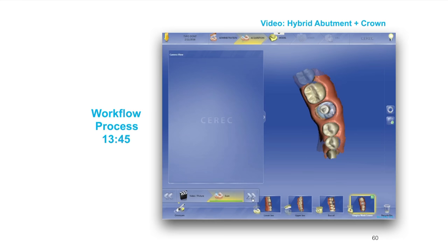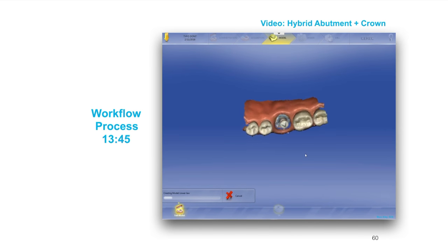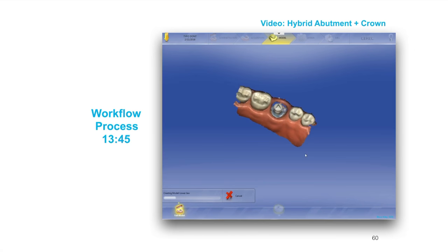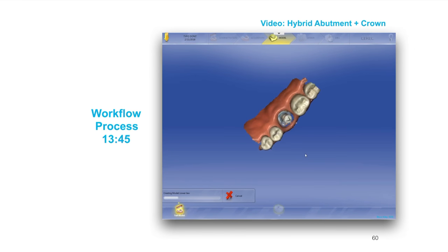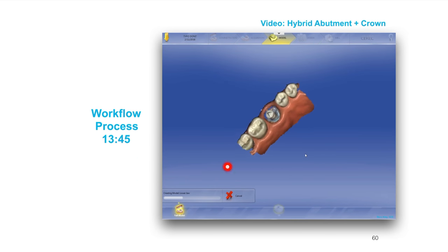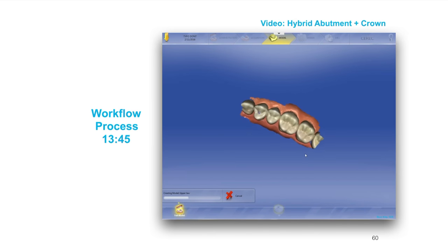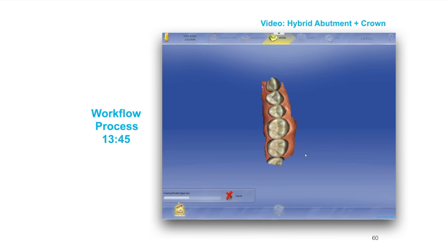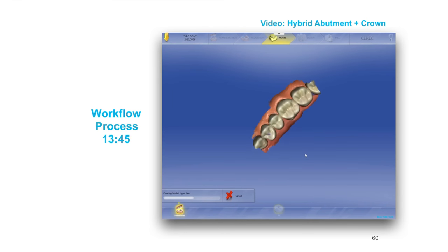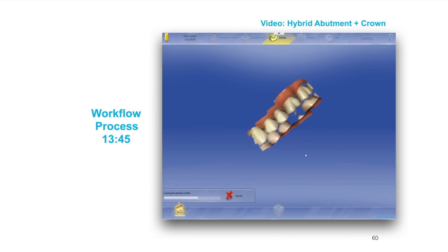Inspect the models and make sure you have the data that you need. You'll notice that the imaging process took just a couple of minutes. Now the computer is going to take a while and think, and this is where you learn how much time too much data will take. It takes forever to do this model calculating if you have too much data. So if you've spent 10 minutes imaging and you've got a giant log of images, you're going to have a heck of a time getting the computer through this step. Less is more, but you have to have the right amount of imaging.